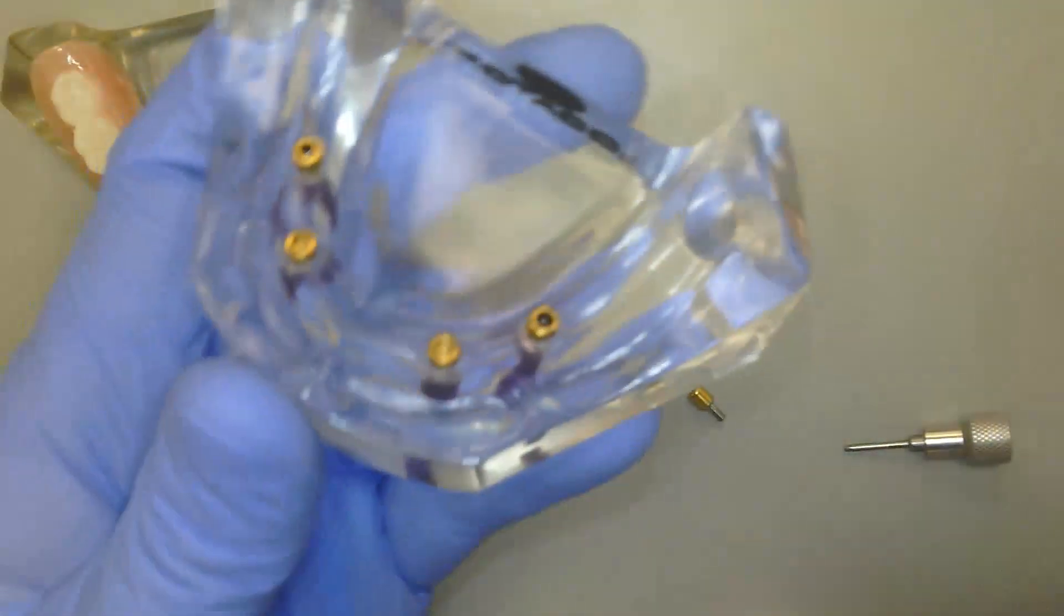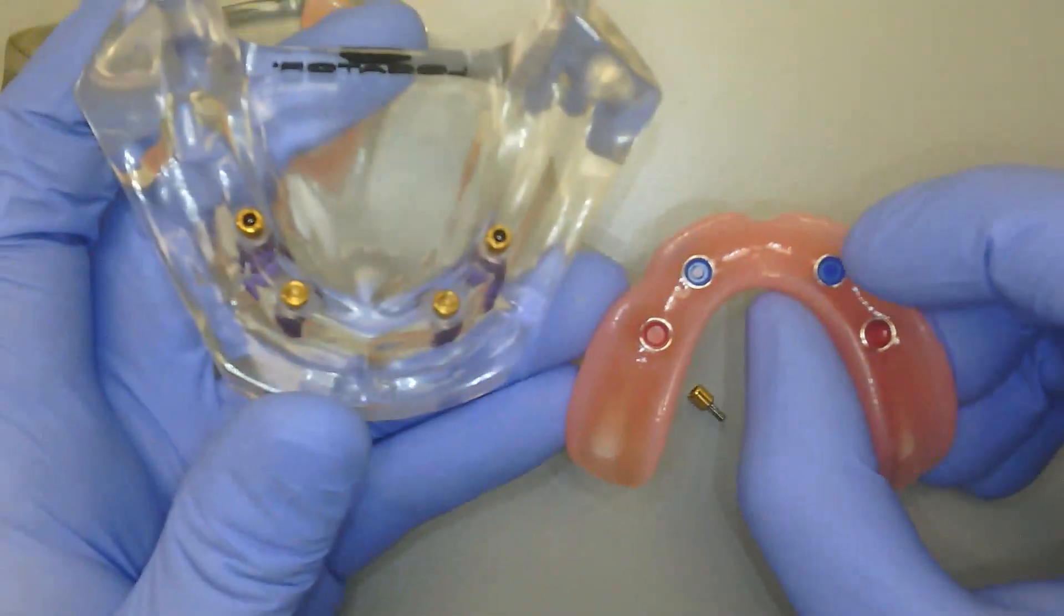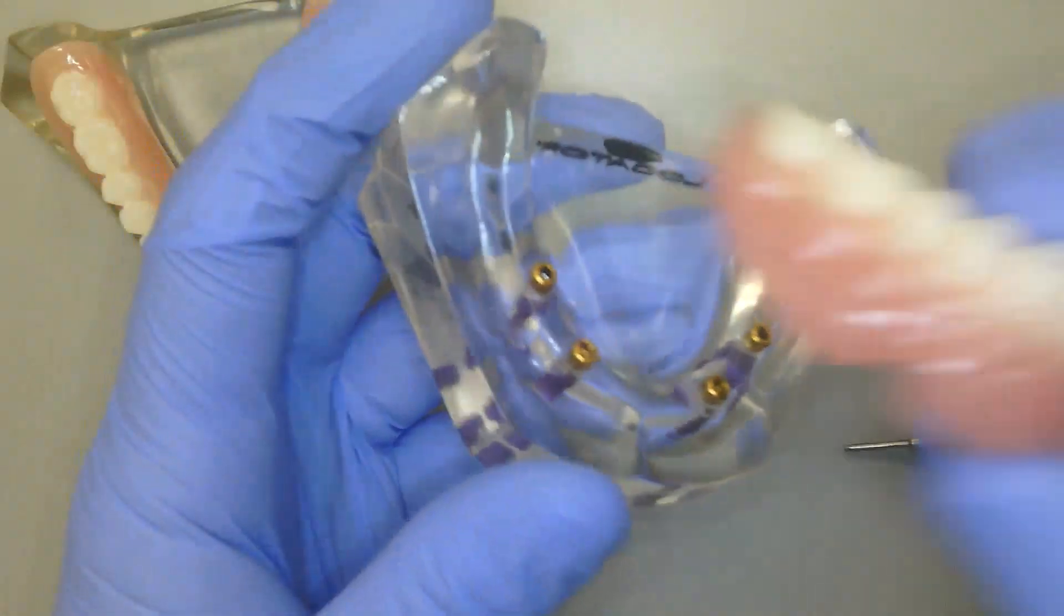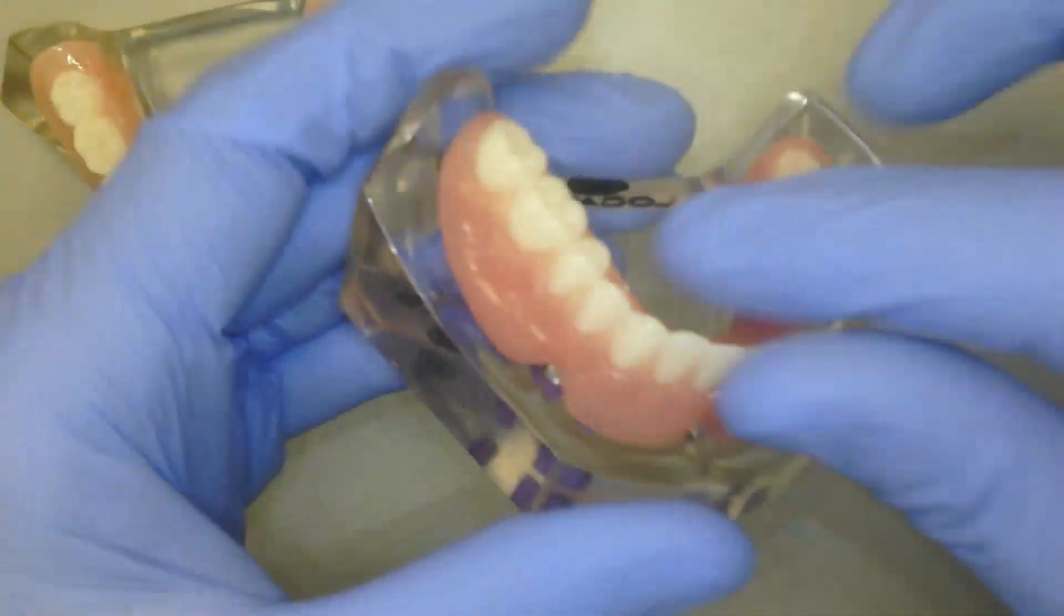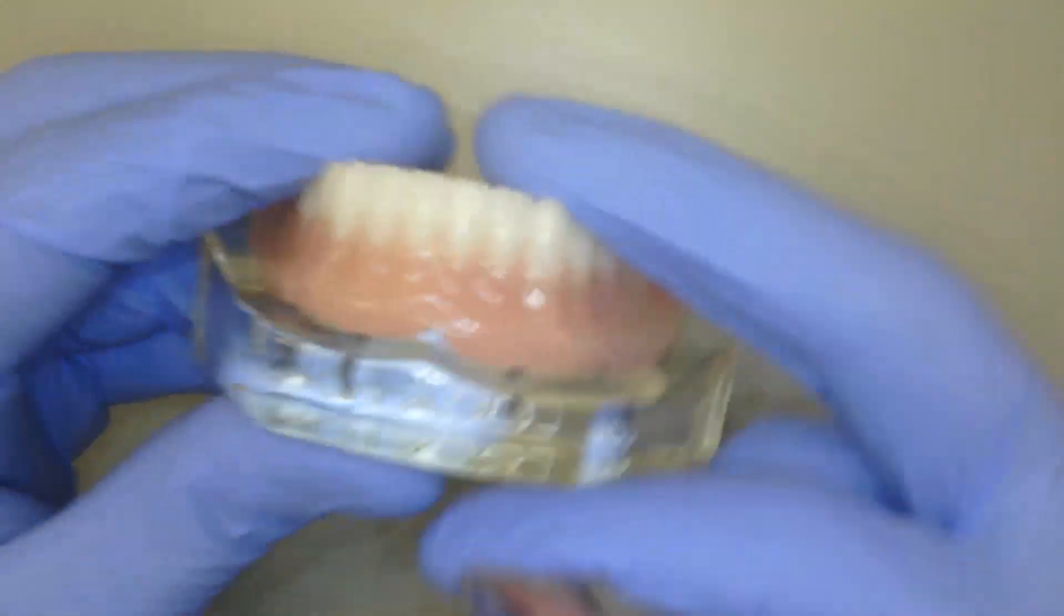Looking at my model here, now we can see that when I take this and show this to the patient, I have my standard range inserts here as well as my extended range inserts here on the back. Pops right on. Gives you a very similar fit and feel as your other denture.